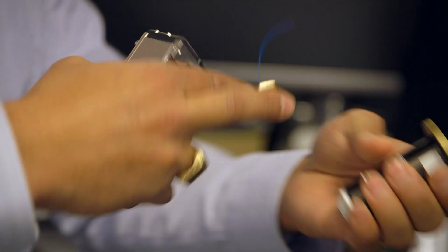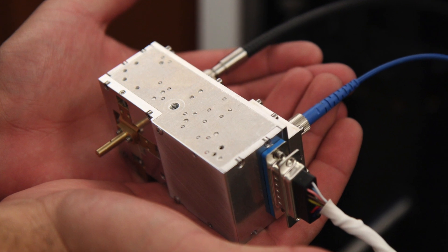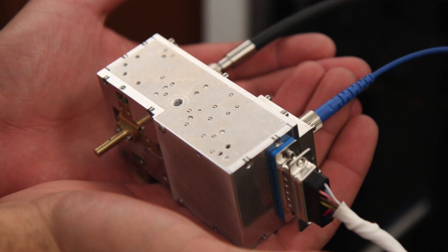This is the first hand-held two-photon microscope, bringing two-photon imaging to a clinical form factor. If you apply a therapeutic like a drug, you could see how the muscle responds, and you can also track disease progression over time.